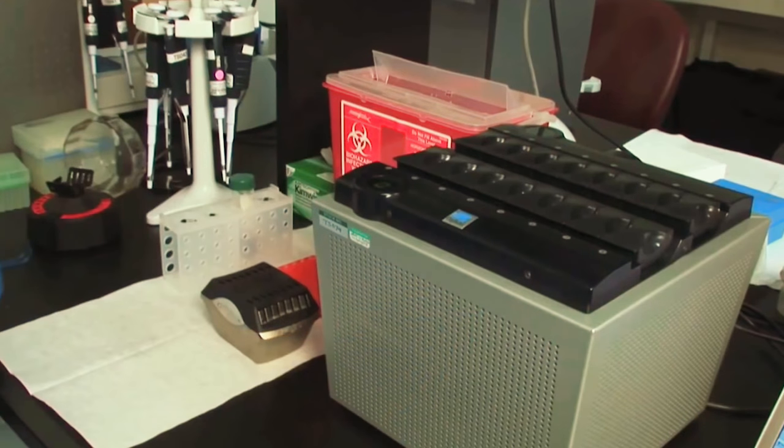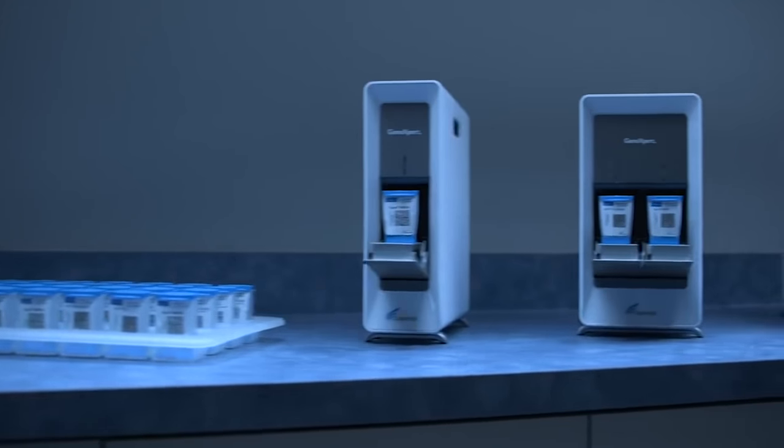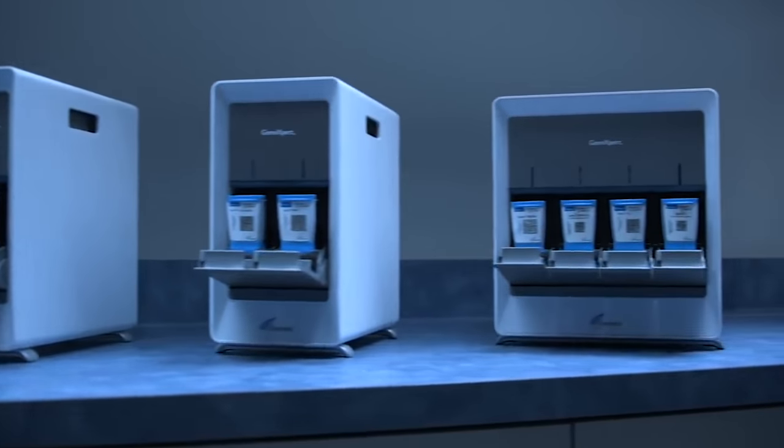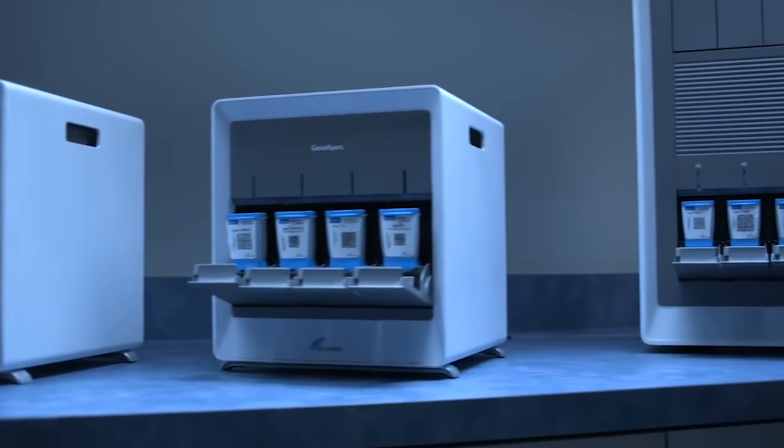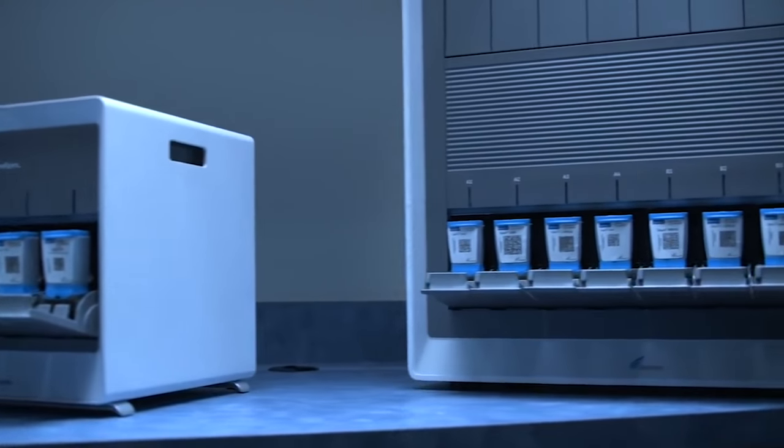Since the introduction of the SmartCycler system in 2000, Cepheid has been at the forefront of molecular diagnostics innovation. In 2006, Cepheid introduced an even better way for any healthcare facility to leverage the power of molecular diagnostics.